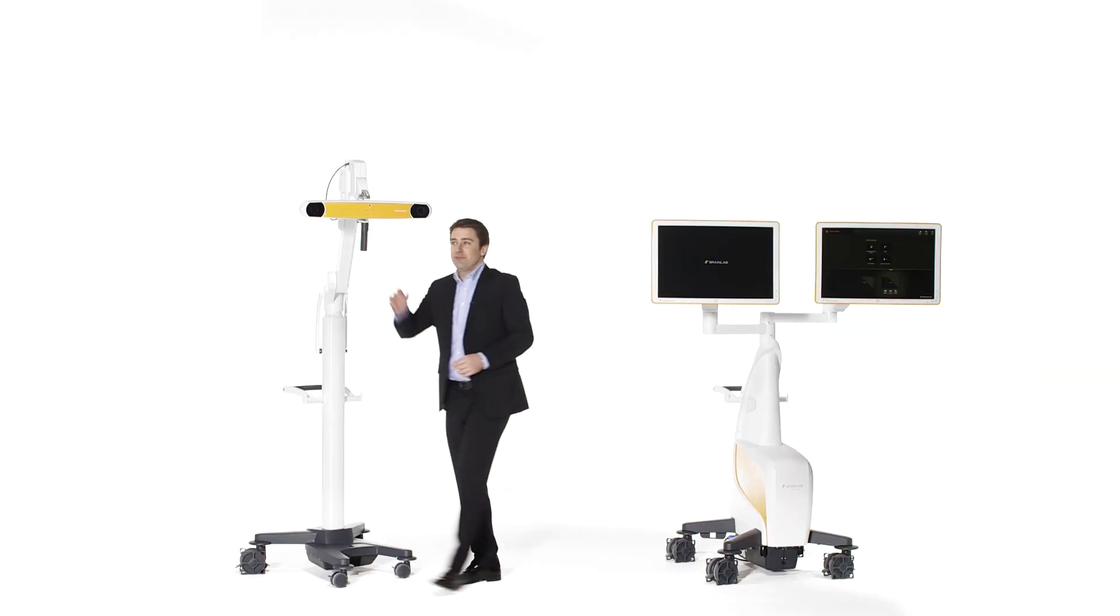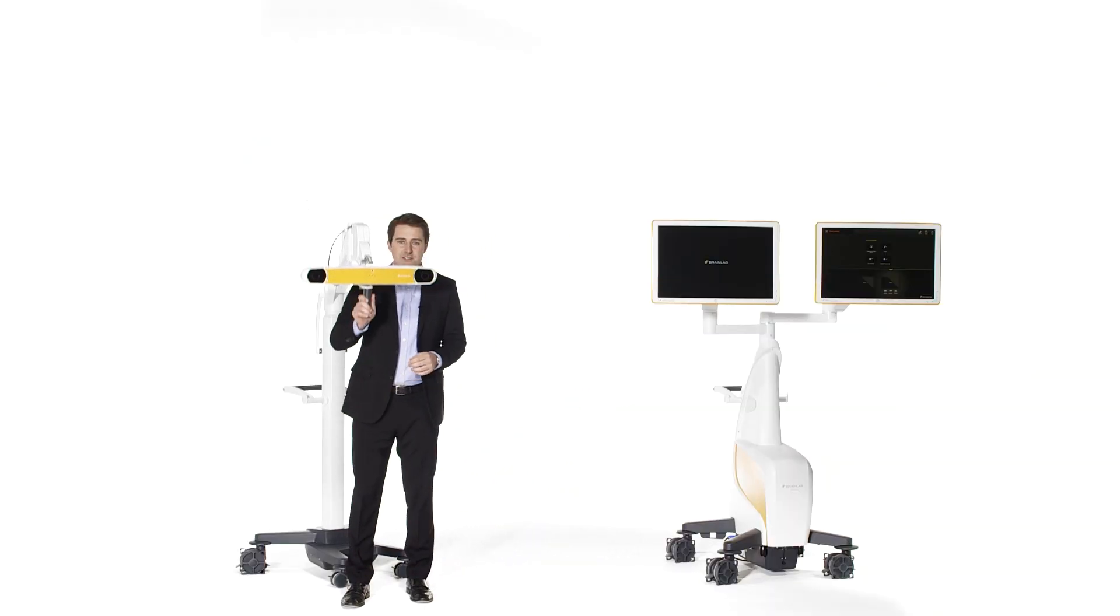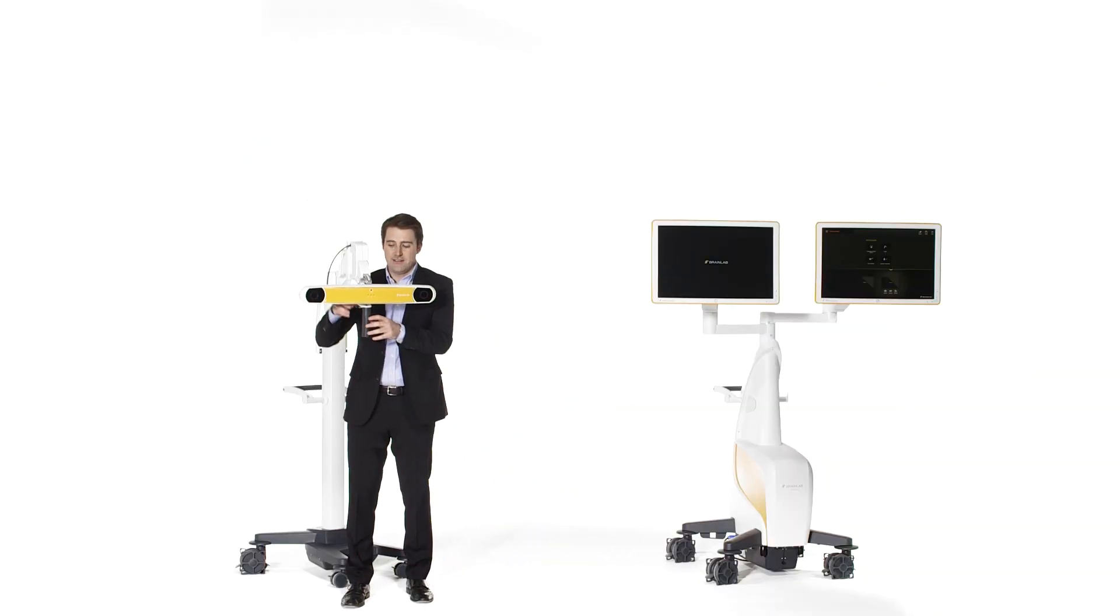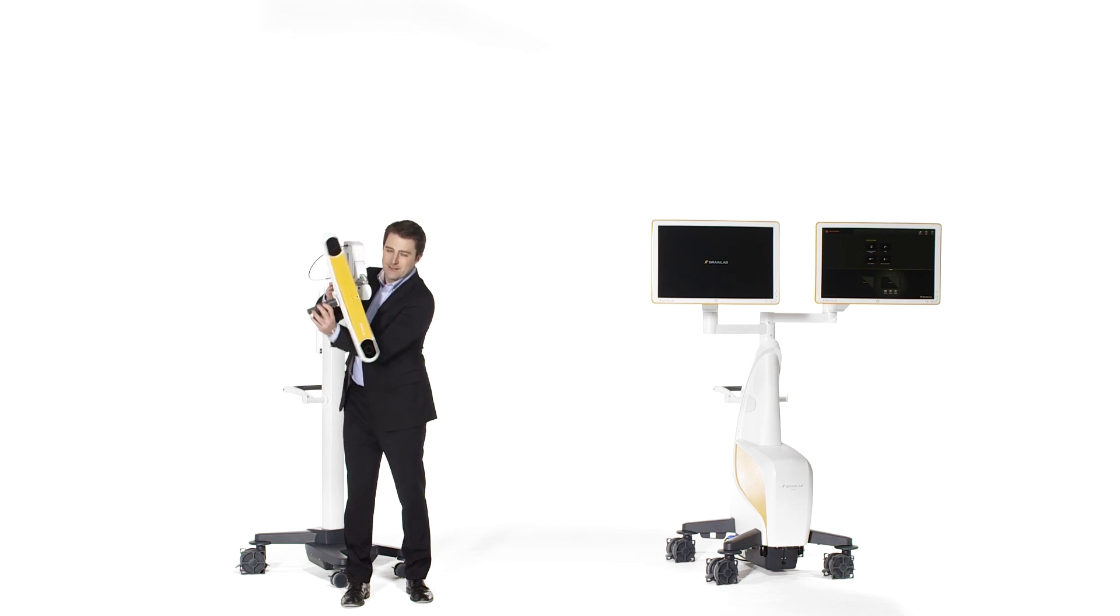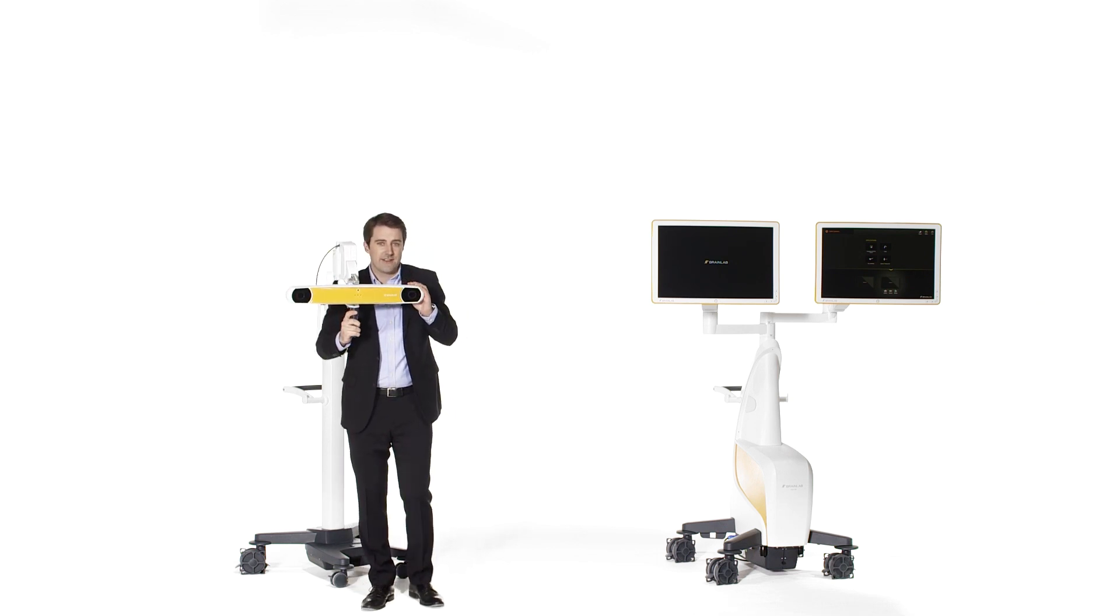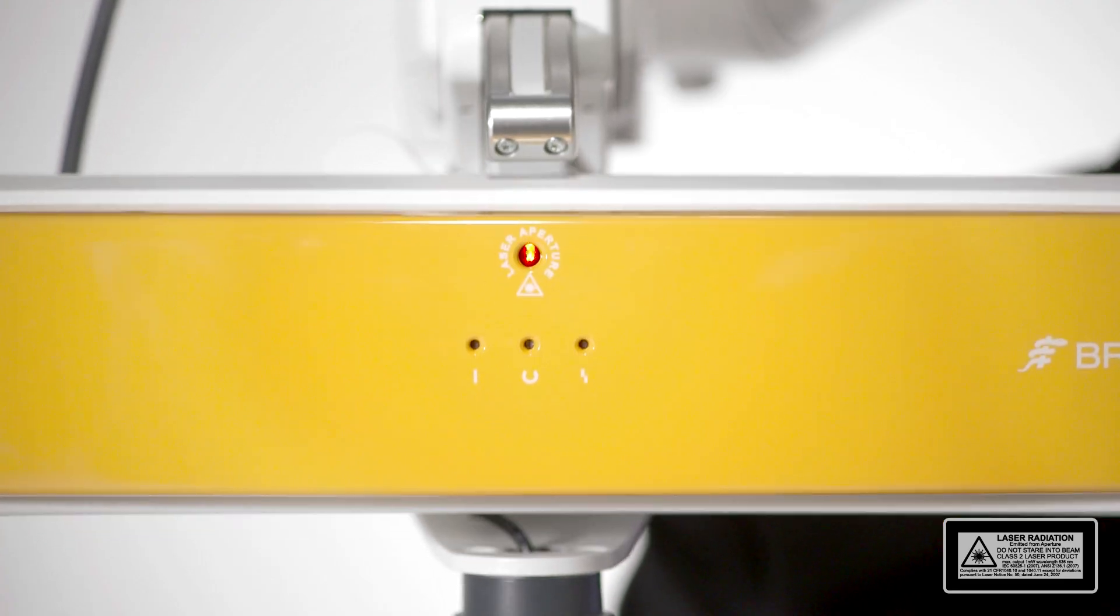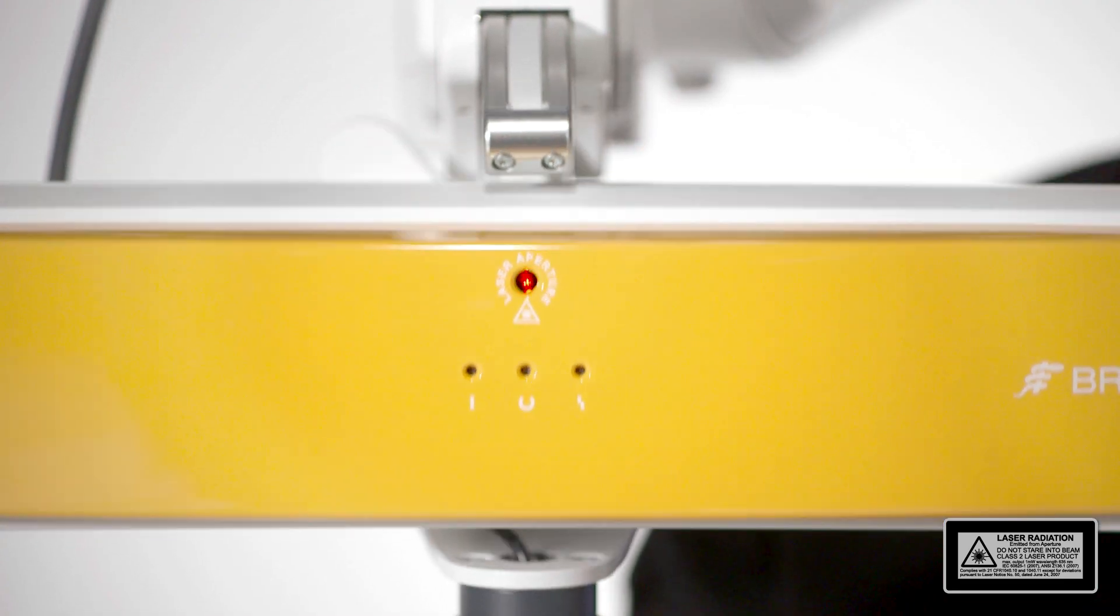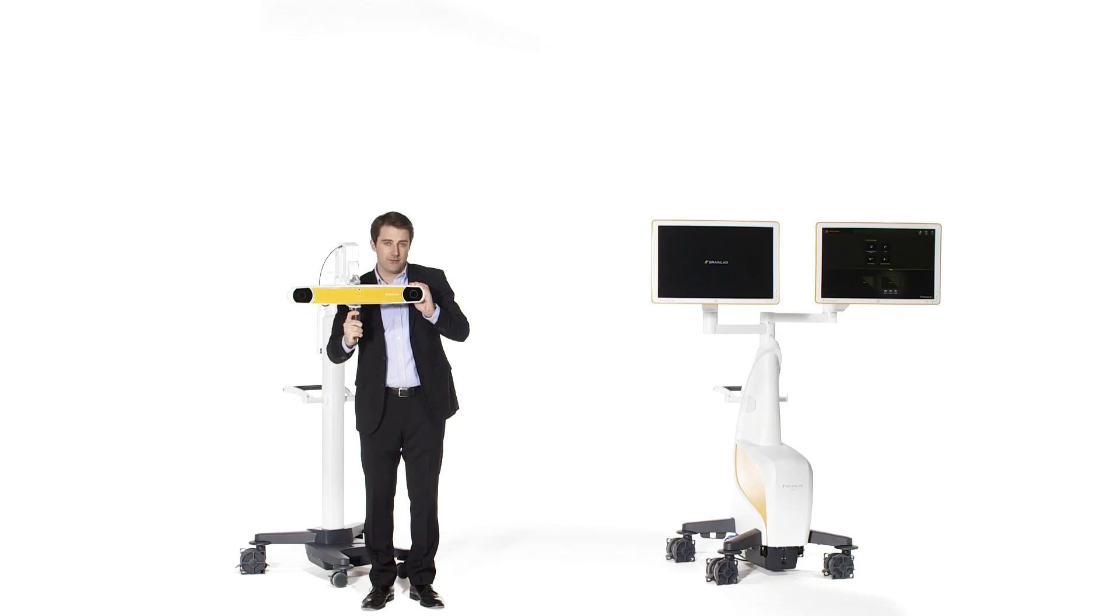The Curve Dual Display camera can be positioned horizontally and vertically. The camera is equipped with a laser pointer, which is valuable for establishing the camera position even before the system is turned on.